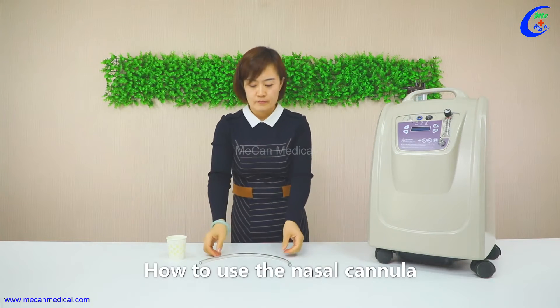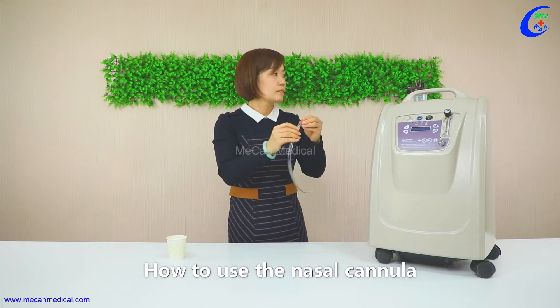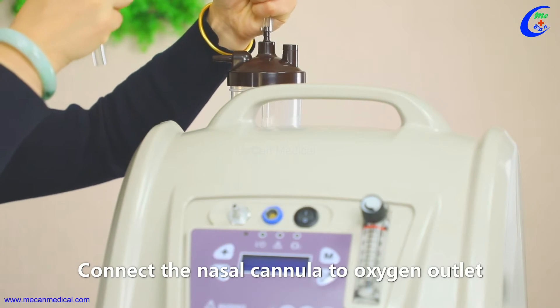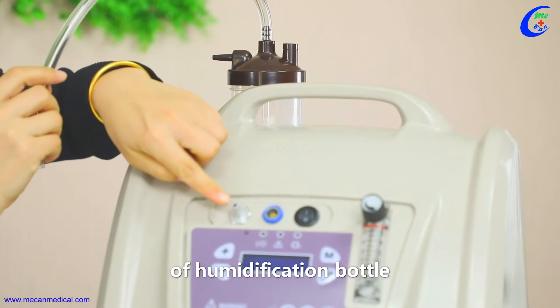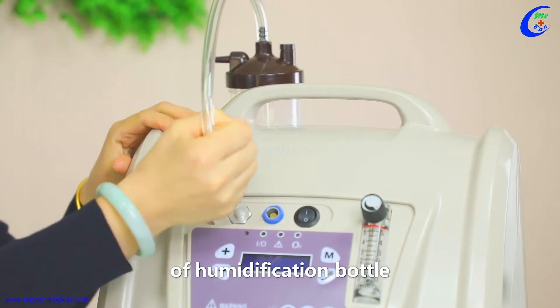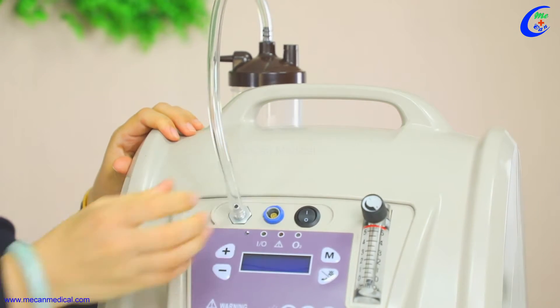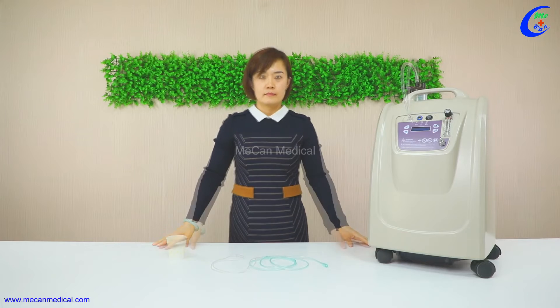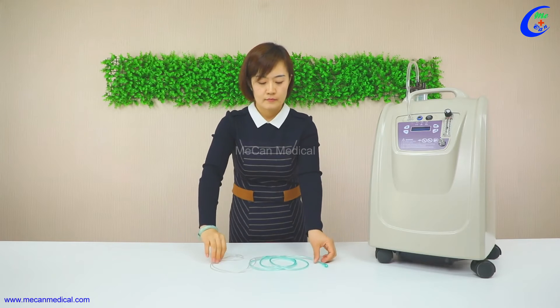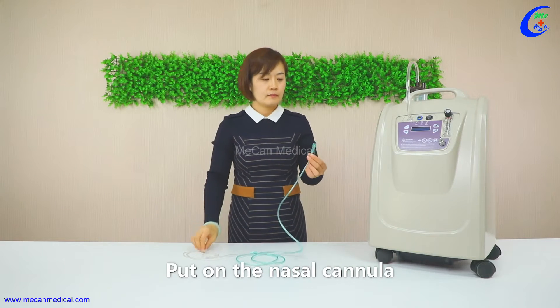How to use the nasal cannula: connect the nasal cannula to the oxygen outlet of the humidification bottle, then put on the nasal cannula.